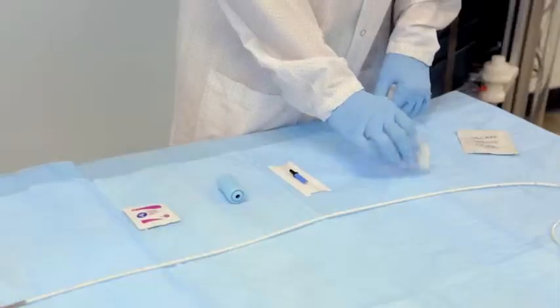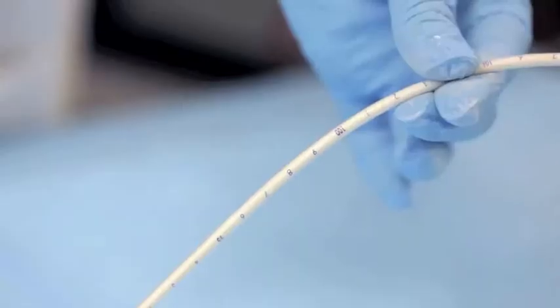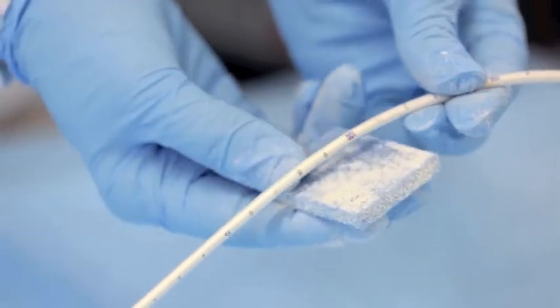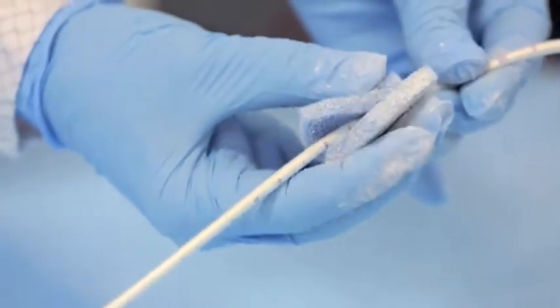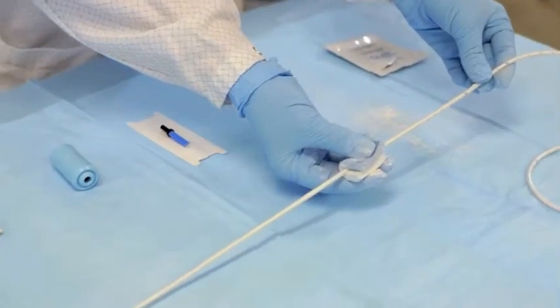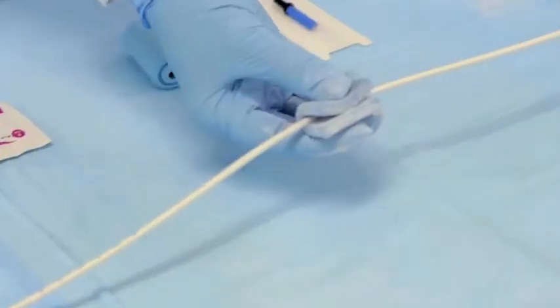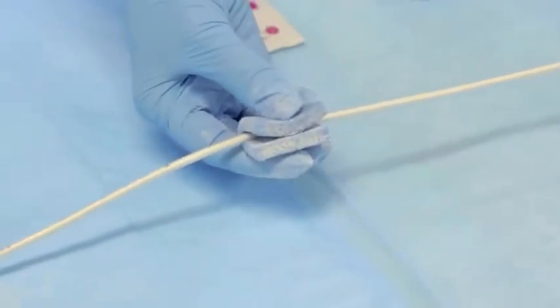With the catheter on a clean towel, table, or workstation, gently fold the supplied talc-infused sponge over and wrap around the ManoScan catheter near the 100 centimeter mark. Slide the talc sponge with light, even pressure down the length of the catheter to the tip. Repeat if necessary to assure complete coverage of the catheter with talc.